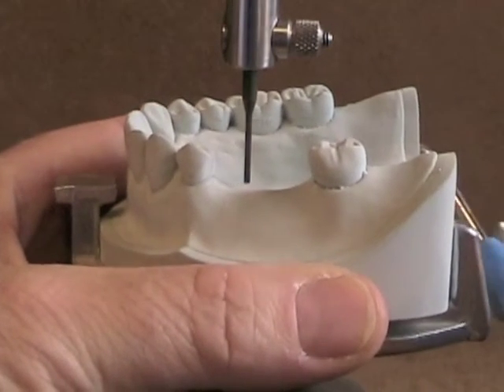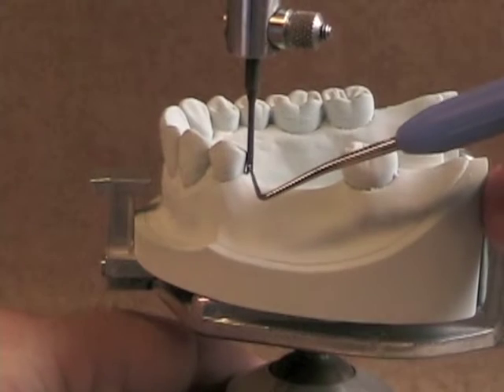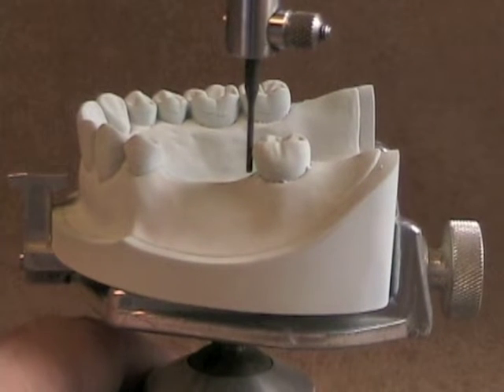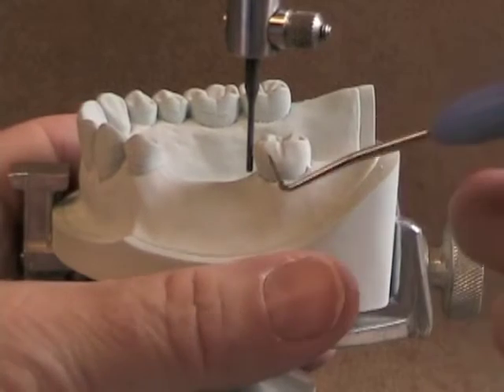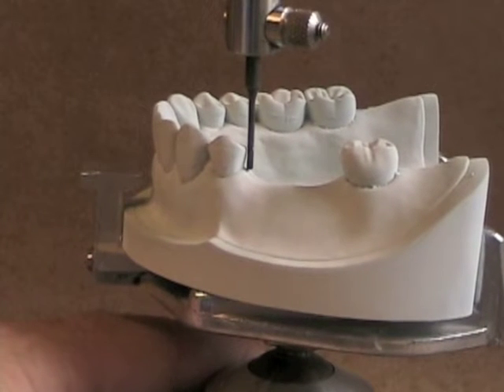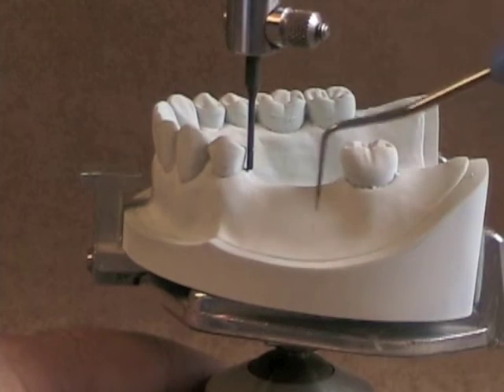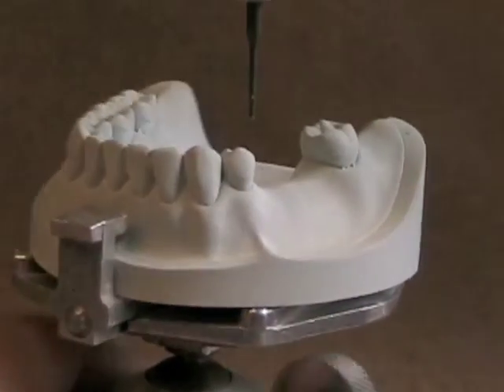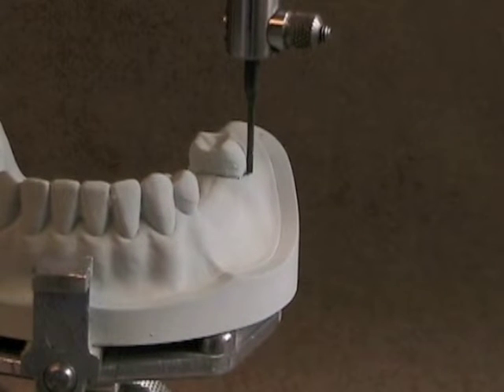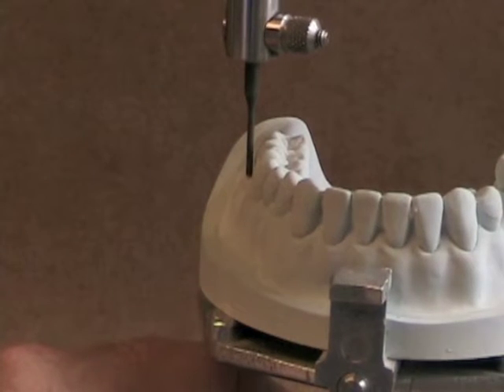So what we're going to do first is tilt our cast to get a tilt where we've got a little bit of an undercut on the mesial or the anterior abutment and a little bit of an undercut on the distal abutment. You can see we've still got a bit of an undercut that's a bit bigger, so we're going to tilt that a little bit more. Now you can see we've evened that out. The tilt that we pick is also important from side to side — we want to make sure that the undercuts we see on the third quadrant are similar to those on the fourth quadrant.